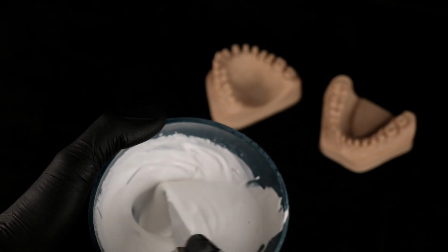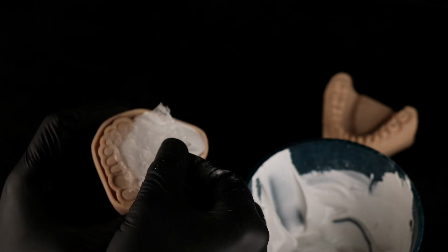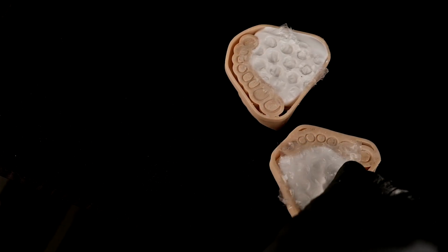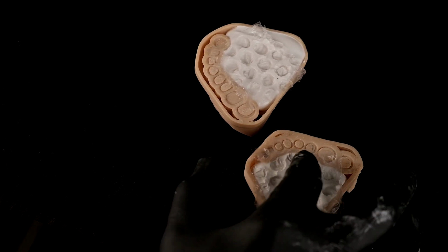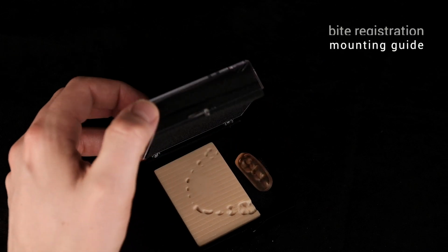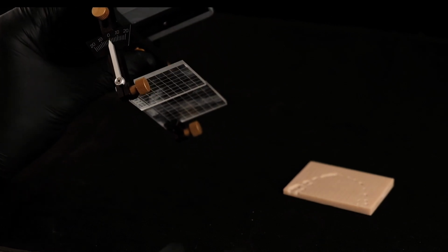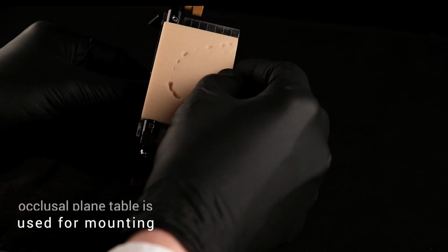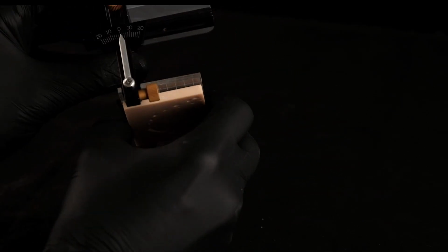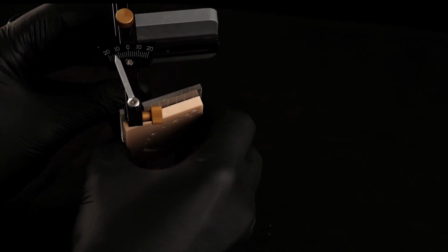But let's grasp occlusion hands-on. We send each participant a case, this case, and work out live all parameters such as occlusal plane, sequential guidance, or retrusive control step by step together. From the analysis to the articulator handling to the finished diagnostic Waxup.